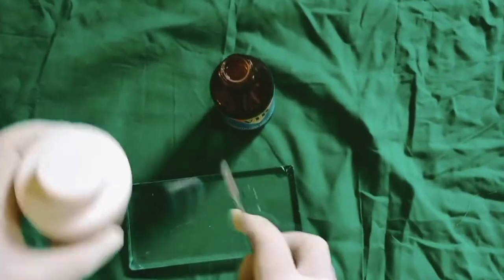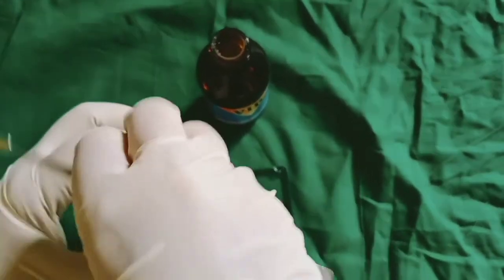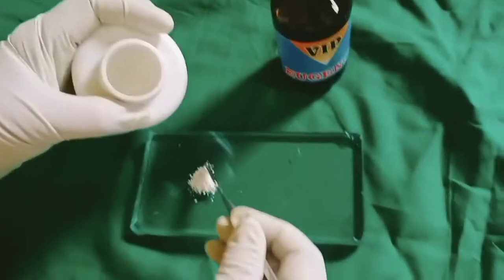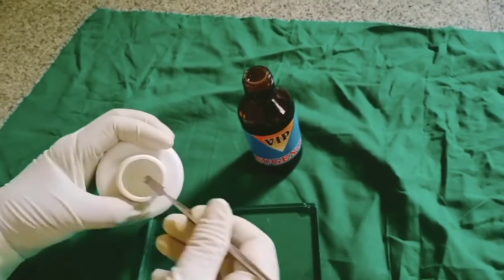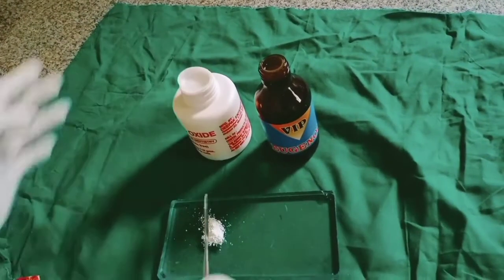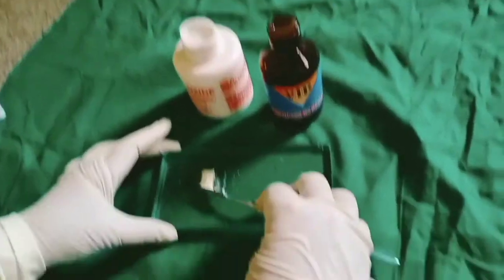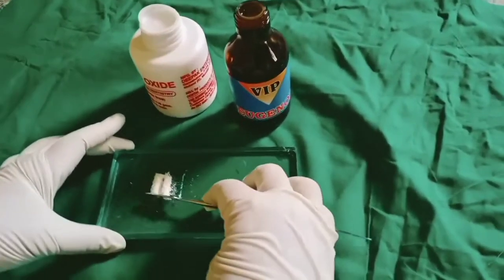We will start mixing. Take the powder with the help of the spatula. Zinc oxide eugenol can be mixed in two consistencies: a thinner and a thicker consistency. Thinner consistency is commonly used to place in the crowns.